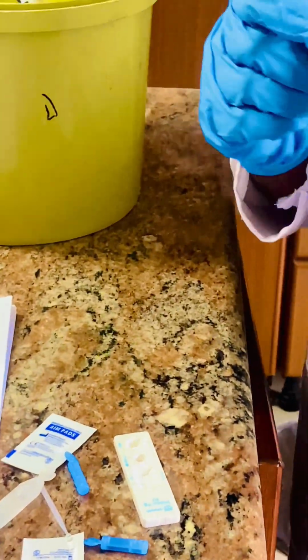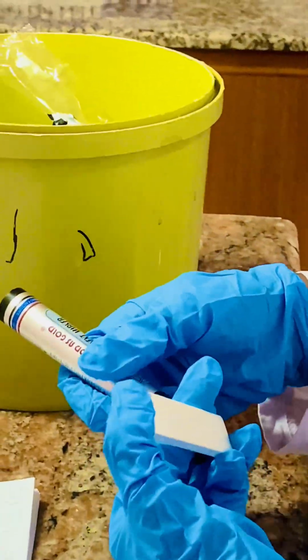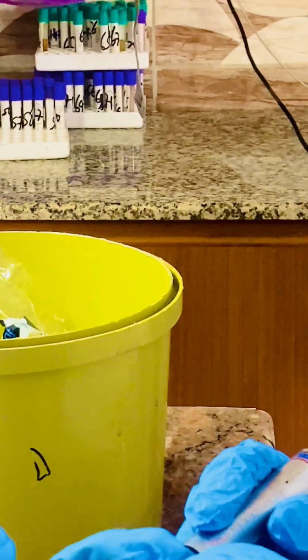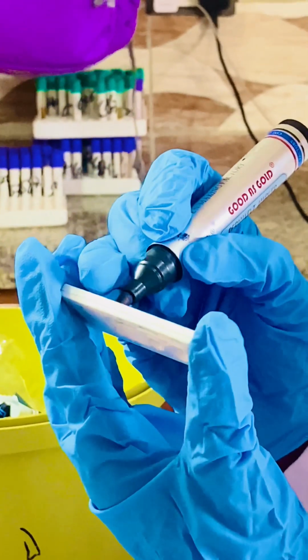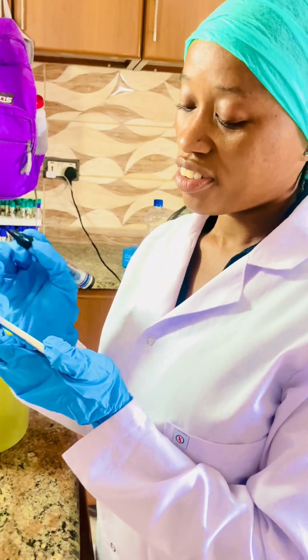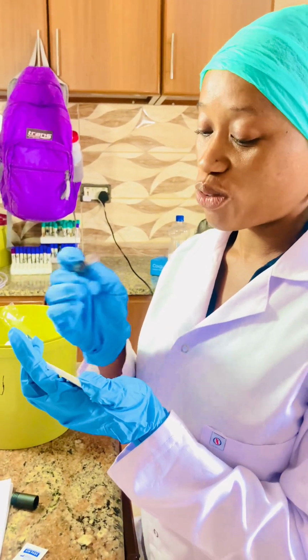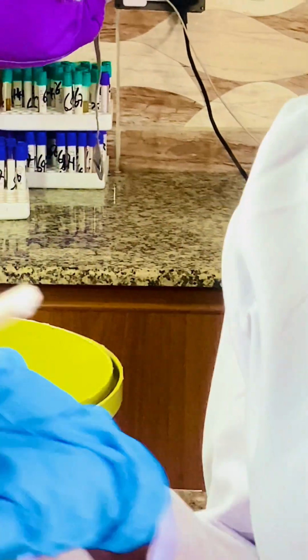And this is a marker pen. This is normally used in the laboratory for identification. So now I'm going to write the patient's name. We don't write it over here because it has a lot of writing on it. So let's say, for example, the patient name is Nancy Kamara. The date, let's say 25th of the 5th month, and the identification number, let me just say 01 or 05. Why do you need to label these kits? Because some patients usually have the same name, so we need to identify these patients.